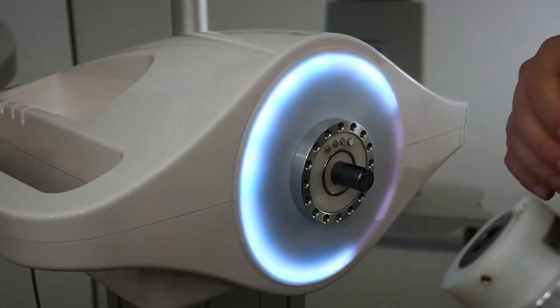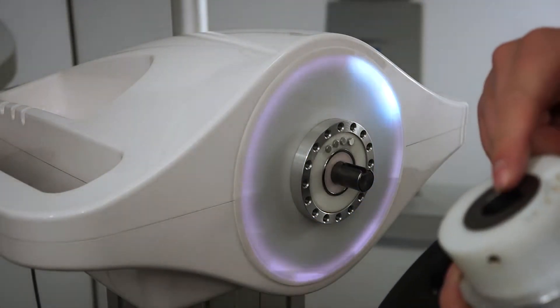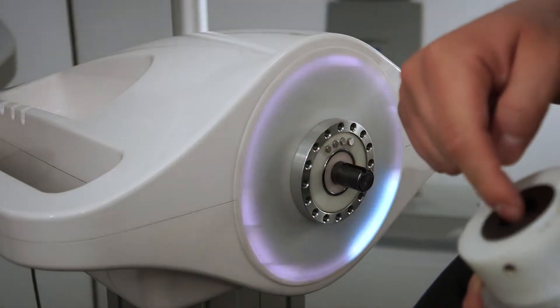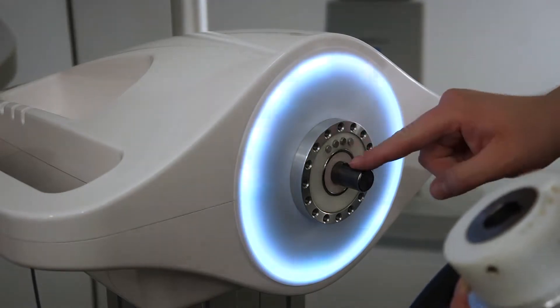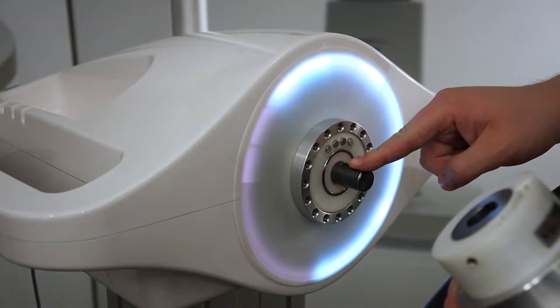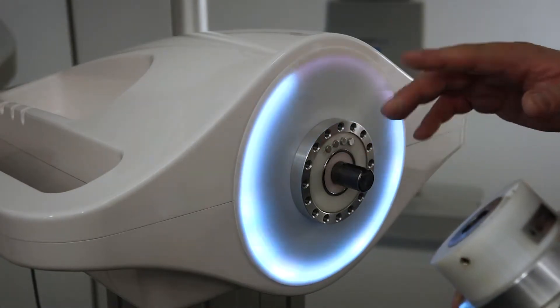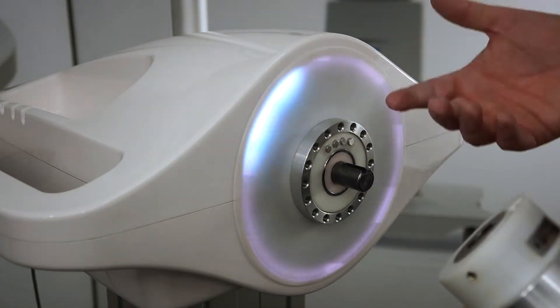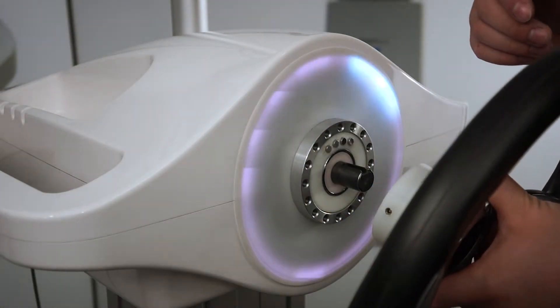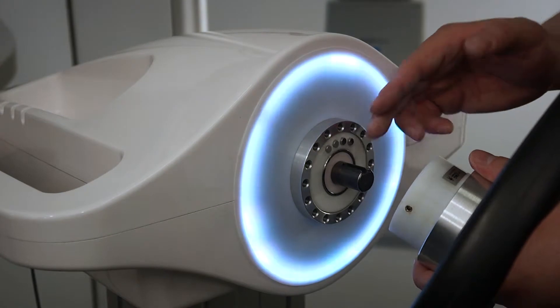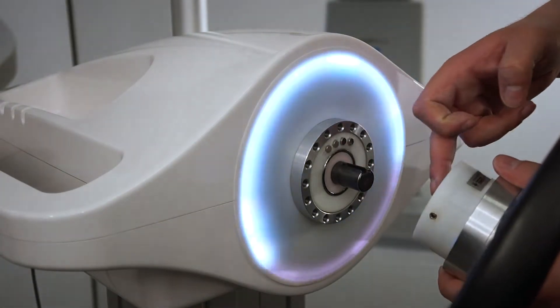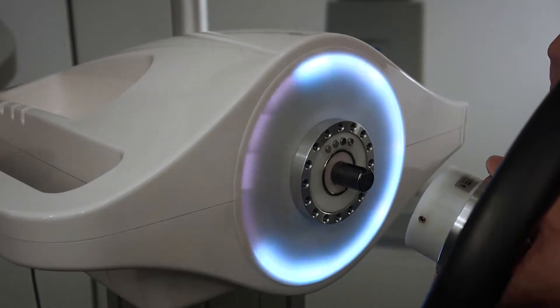It's a tight fit, so the hole in which the shaft is going into is a tight fit. It has to be aligned - the axis of the hole with the axis of the shaft. If they're misaligned, you'll have trouble putting it in, and any misalignment will provide friction and make it difficult to put the extension in. We're going to show you step by step how to put the extension in, but keep in mind that the alignment of both is key for an easy and quick setup.